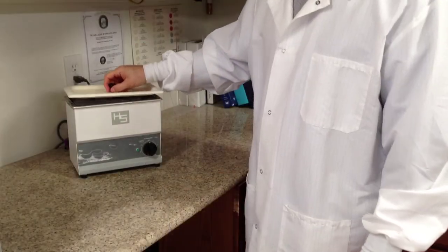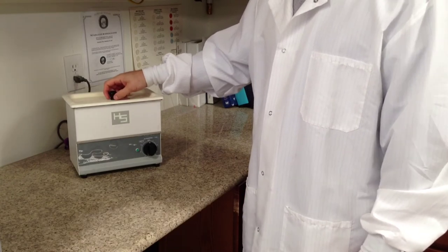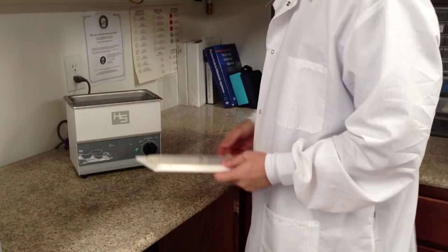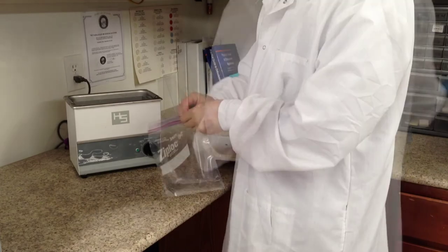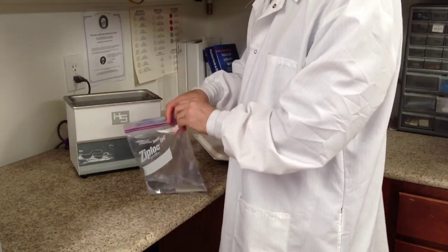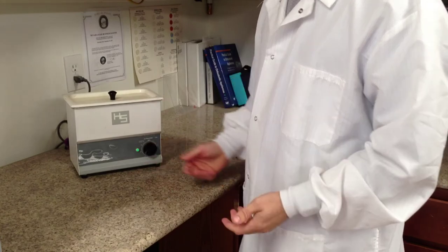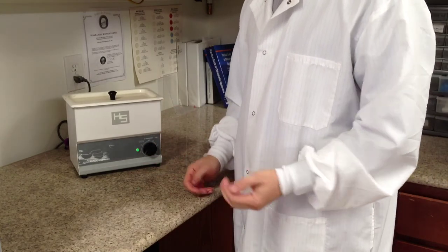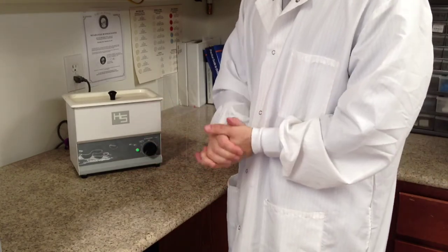This is the ultrasonic cleaner, used when you are finished fabricating the retainer. To disinfect, add it into a cleaning solution provided in the lab and set it for about six to twelve minutes, however long you feel it needs to stay in there.